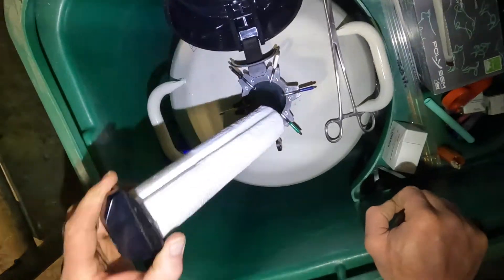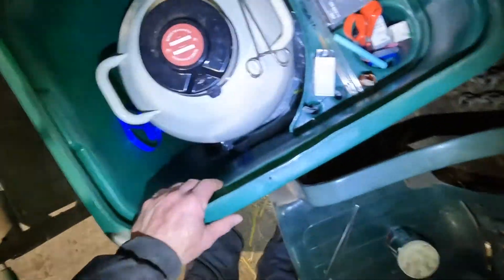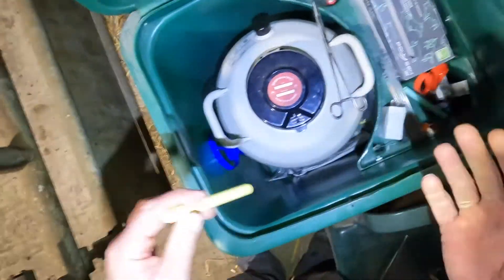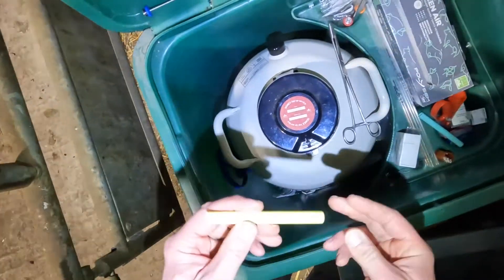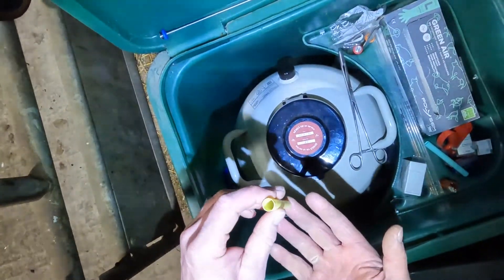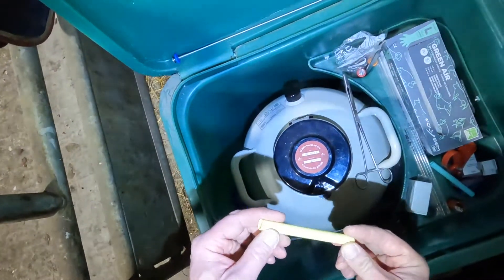You're far better to find out they've floated now at this instance than when you come to serve a cow. The temperature difference in your dry shipper doesn't affect your straws — they're still cryogenically stored, they're still fine — but the delivery pot can be a little bit warmer than the environment in your flask. As it hits the liquid nitrogen in your flask, the temperature change creates vapor underneath it and will boil it up out of the canister.